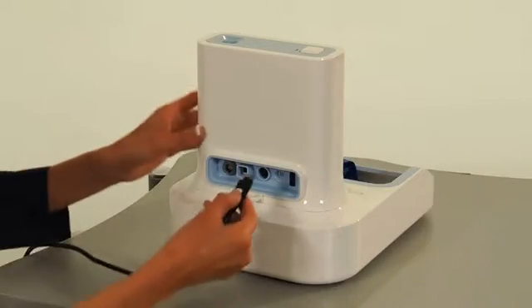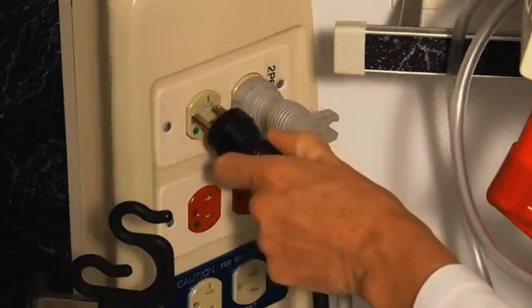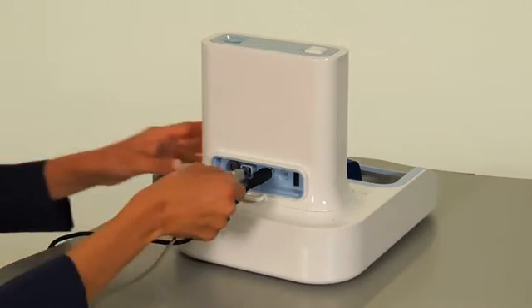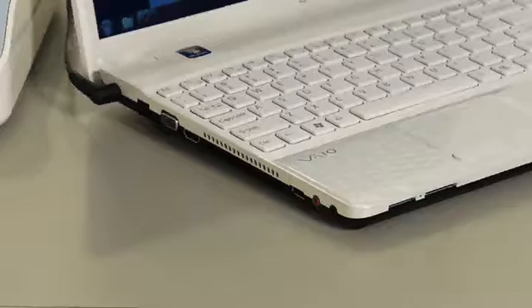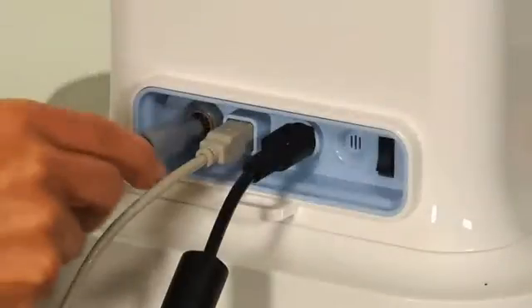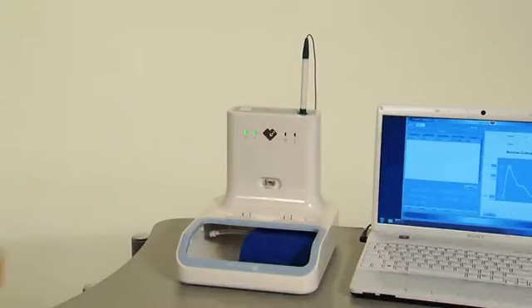To set up the SphygmoCor Excel system, connect the computer and the Excel unit to a power source. Connect the device via USB cable to a computer where the SphygmoCor software is installed. Connect the tonometer to the SphygmoCor Excel device.